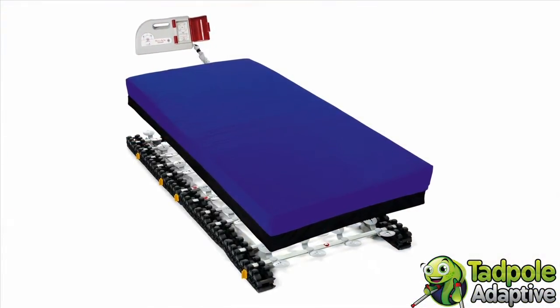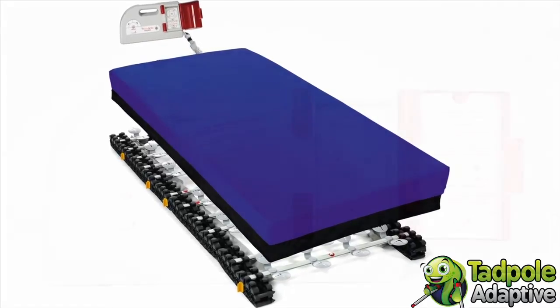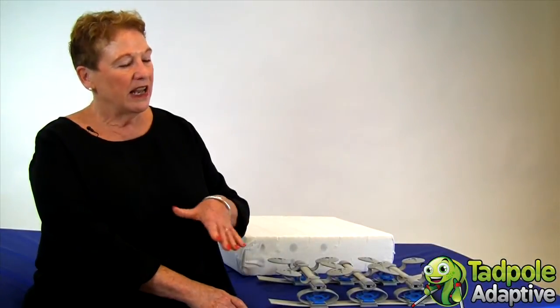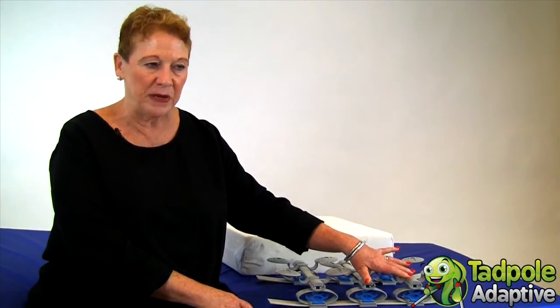With Sleeping Star Active, we connect a very small electronic unit that creates a very gentle movement pattern from the foot to the head. For six minutes it comes up in a wave and goes back down to the feet, and then it rests for four minutes.